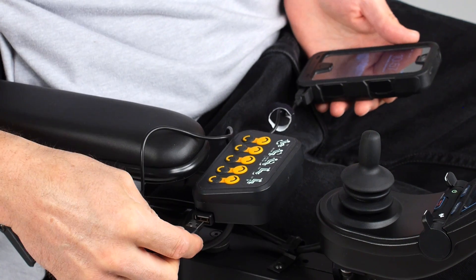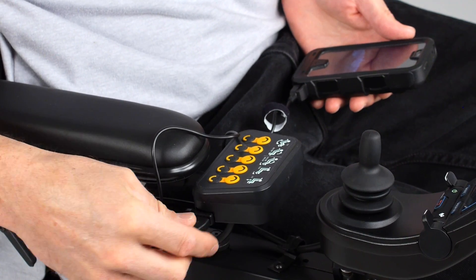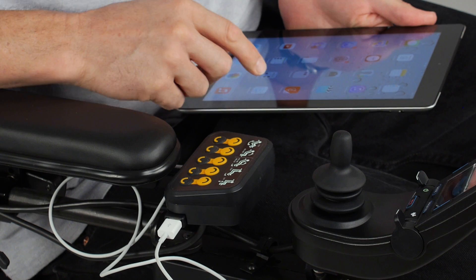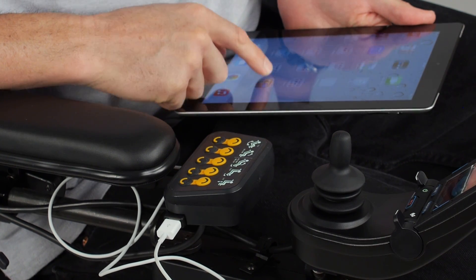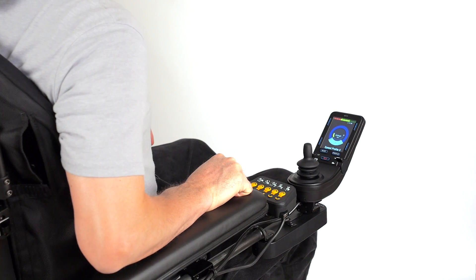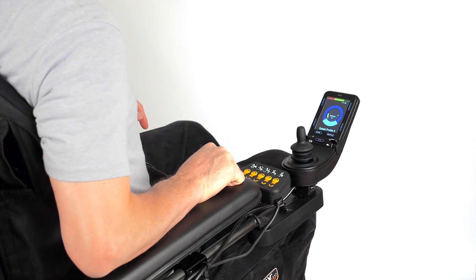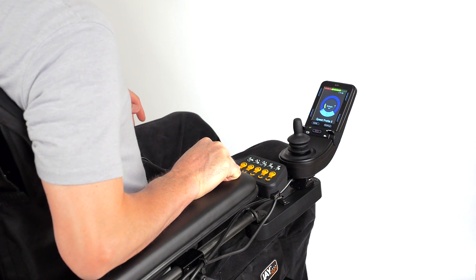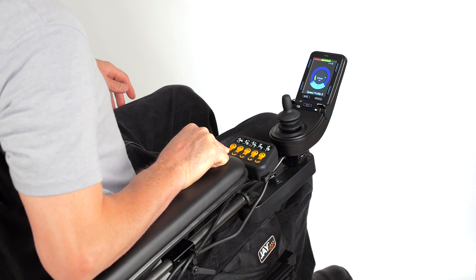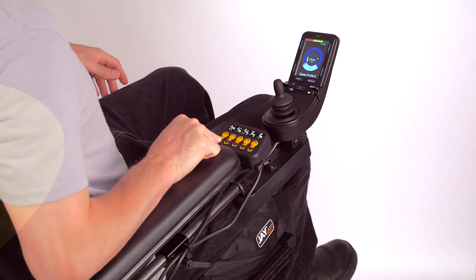So, if a user wishes to charge their phone or other USB device, everything they need is at their fingertips. As the name suggests, Control-5 provides instant control without the burden of navigating through a lengthy menu system.